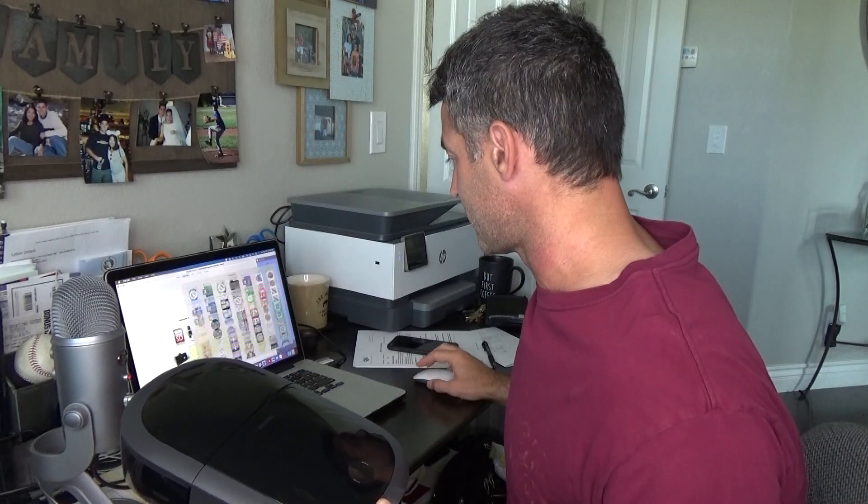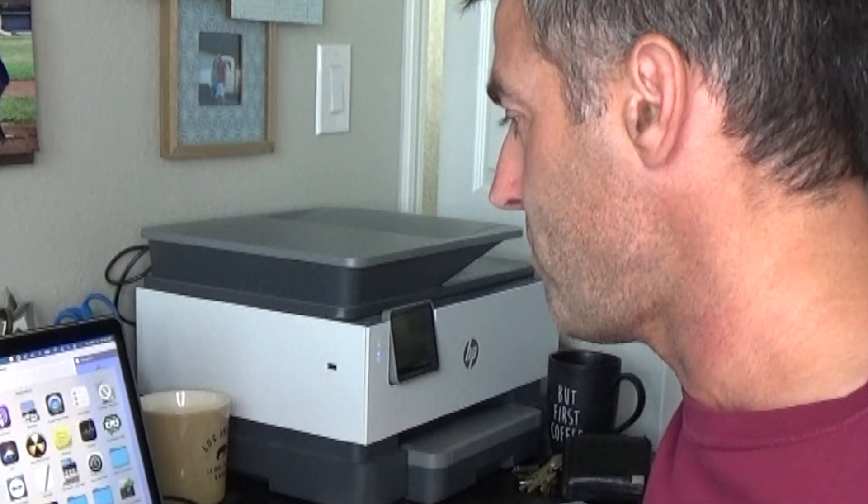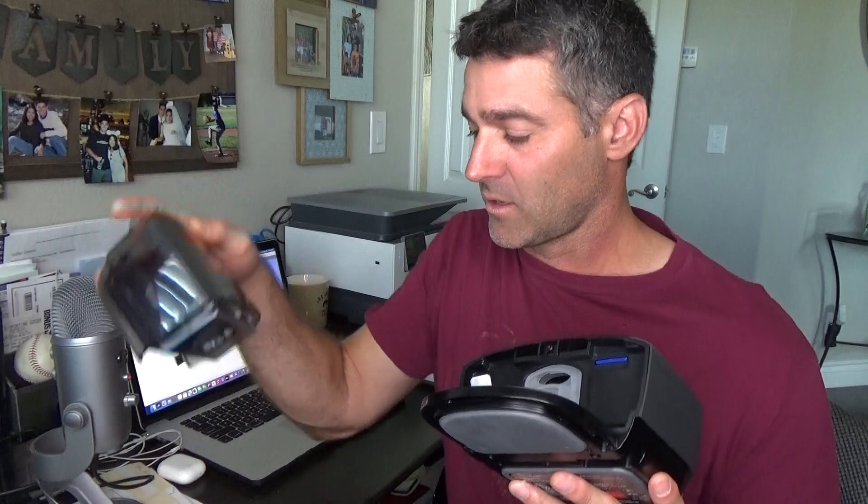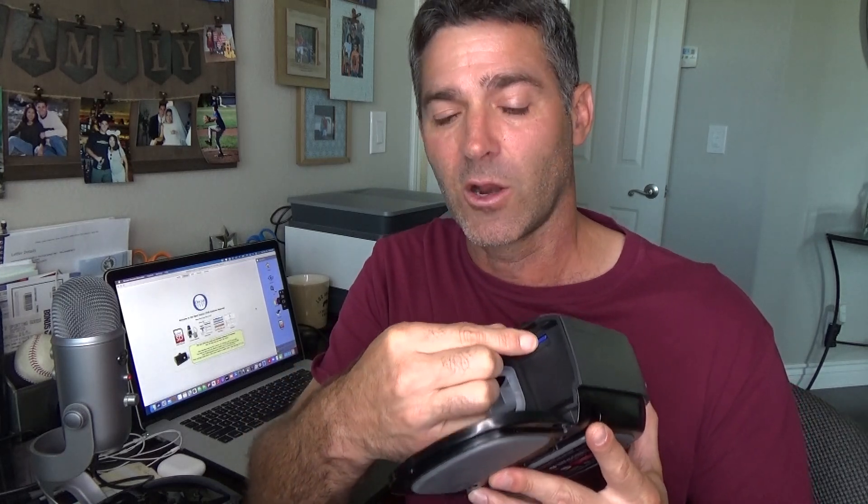Let me go ahead and cue up OSCAR here because we're gonna sync these up. While we wait for the screen recorder to pull up I'm just gonna yammer more. We're gonna see if this is compatible with OSCAR — I don't know if it is yet. To get to our SD card, first you have to have an SD card in there. If you do not have an SD card in here — and this did not come with one — you need to put one in, otherwise it records absolutely no data.